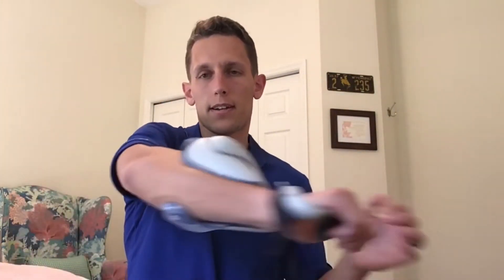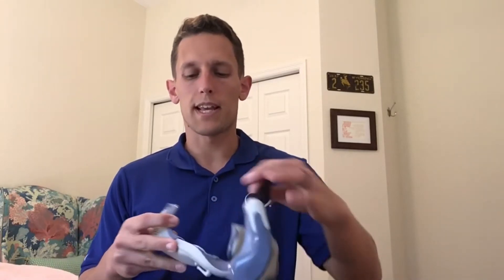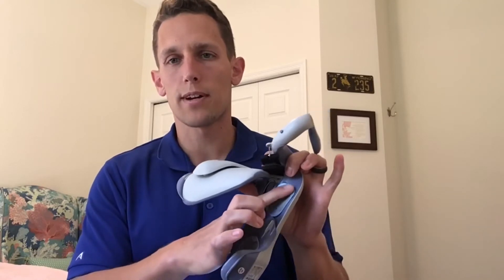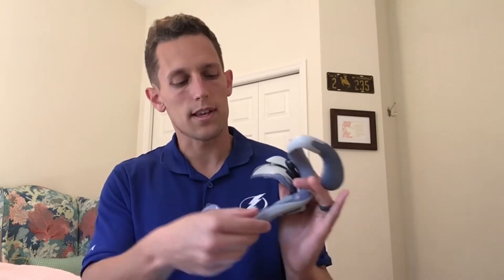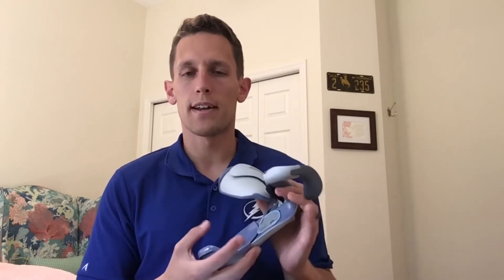You can see I do not have enough contact here with the H200 to my skin, and that is causing the error. If you're not sure what part of the orthosis it is, pay attention to whether the error happens with extension or flexion. If you don't get an error with extension but do with flexion, check for air gaps between the patient's skin and the orthosis. Often the patient has a very thin forearm and isn't making full contact. In that case, try adding the FPL bump out from your clinician's kit — that added thickness should resolve the issue where the air gap is on the forearm.